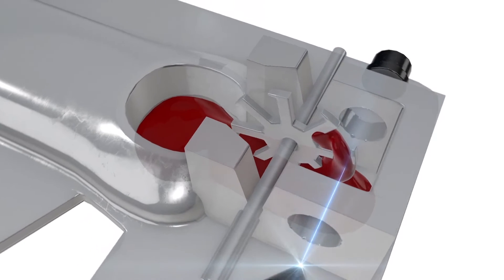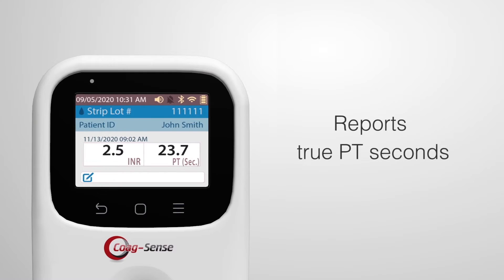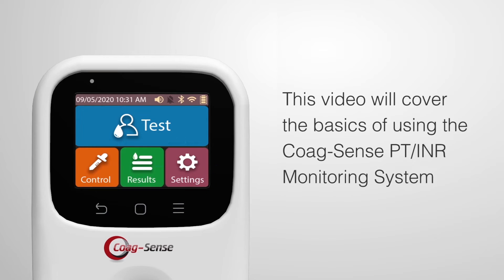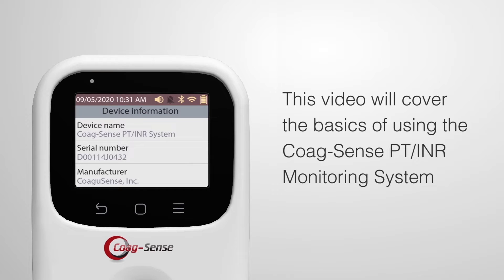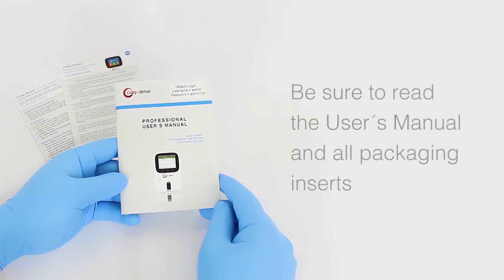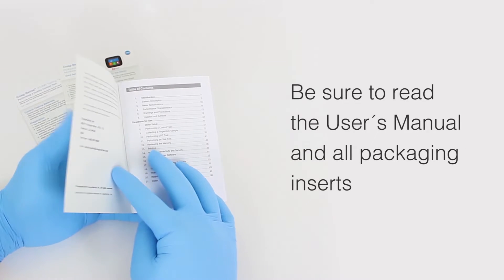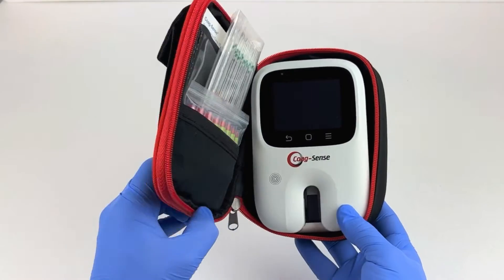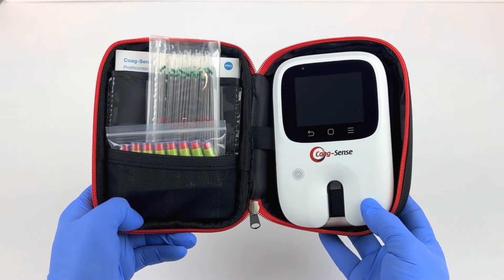Since the system directly detects the clot formation, it reports true PT-seconds. This video will cover the basics of using the CoagSense PT-INR Monitoring System. For complete instructions, please be sure to read the user manual and all packaging inserts.